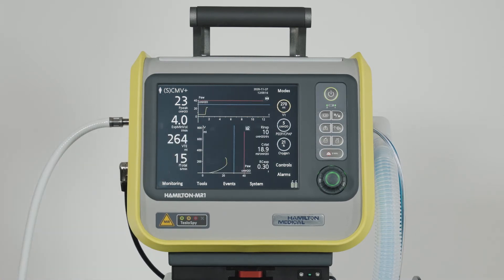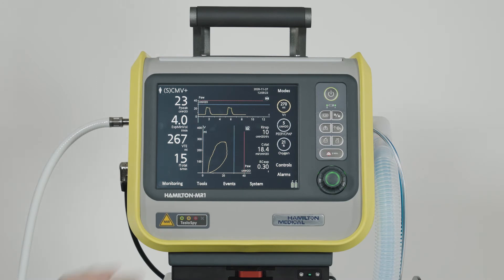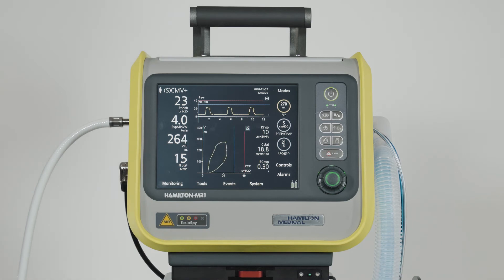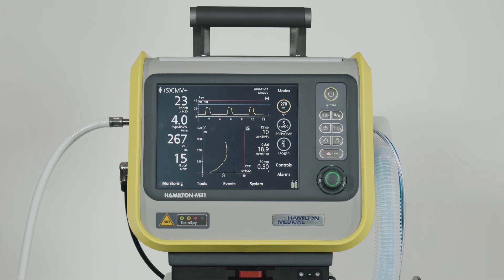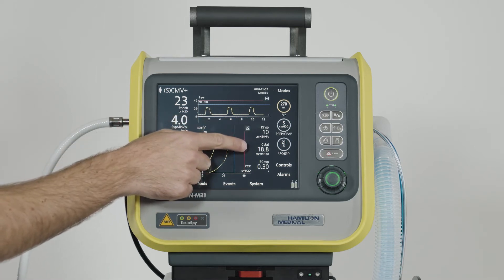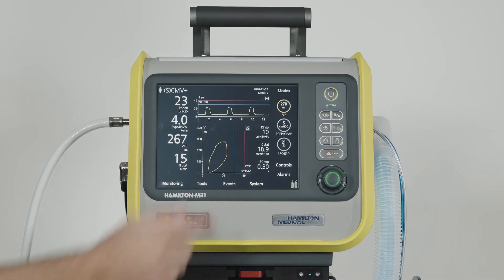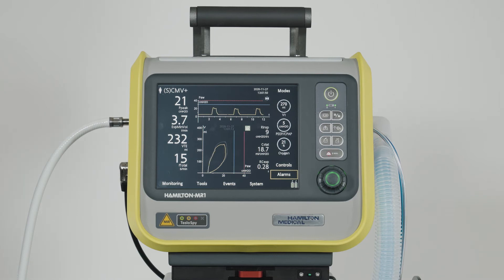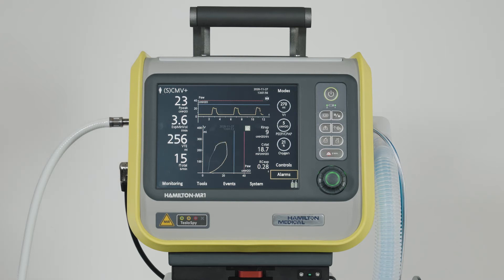The pressure-volume loop is displayed with volume as a function of pressure. The red and blue lines have the same meaning as on the pressure-time waveform — the red line represents the high pressure alarm limit, while the blue one corresponds to the maximum safe pressure we can apply. The slope of this loop is the respiratory system compliance. With each loop displayed, you'll see some additional information like the current values for resistance and compliance, and the time constant. If you need to store the current loop curve, just touch the Loop Reference button and the current loop will be saved along with the current date and time. You can see both loops — the current and the past one — displayed together so you can analyze them.